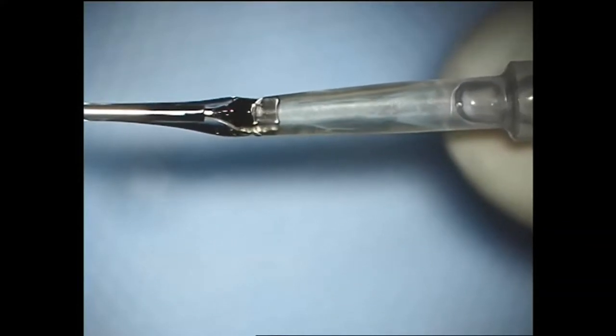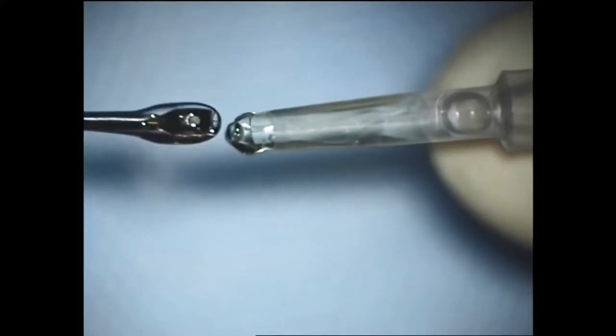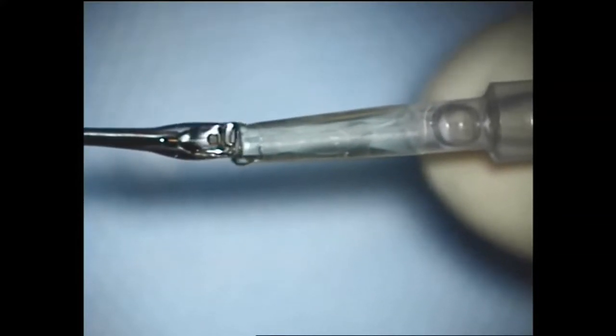I myself have experience with the round form. It was not stuck, but it did bite a piece out of the haptic.